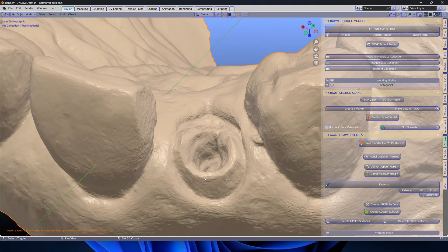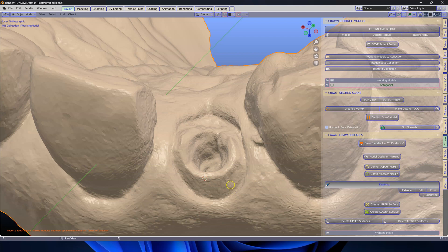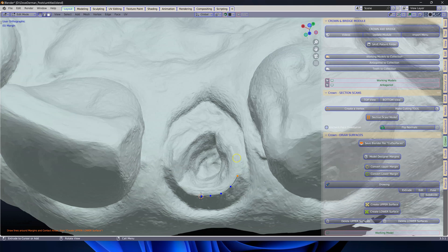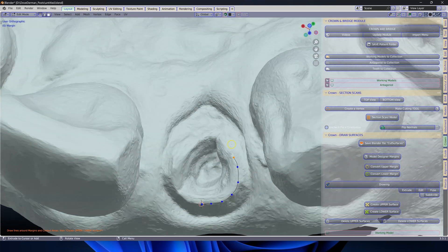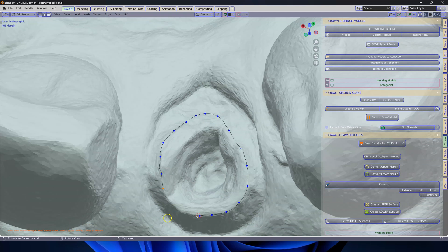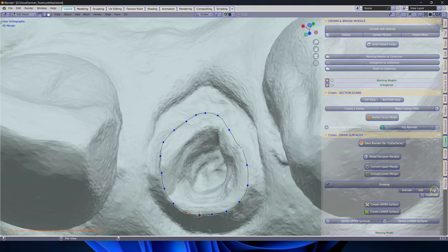We're going to put my cursor over here and we're going to start drawing. This is going to give us two vertices, which I'm going to click on extrude, and we will then extrude them along the top where the post is. I assume it's going all the way down to here. When I'm done with that, when I'm close to the edge, I'm going to click on fuse and then I'm going to click on create upper surface.